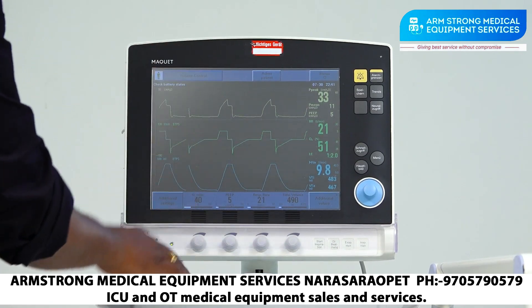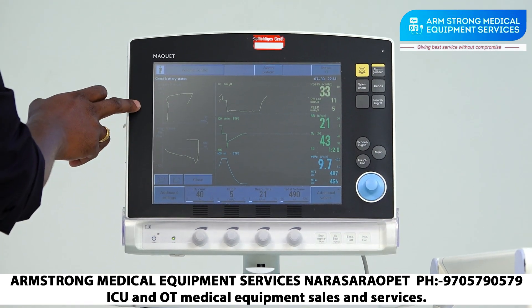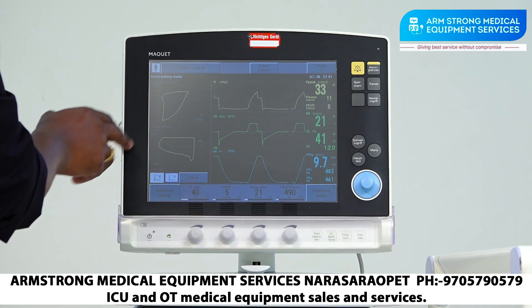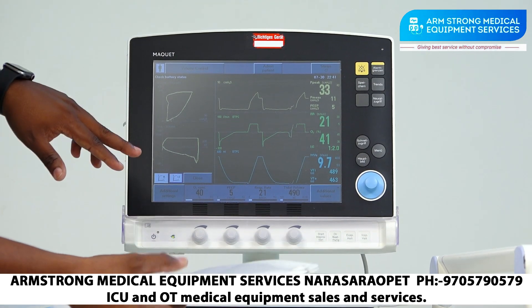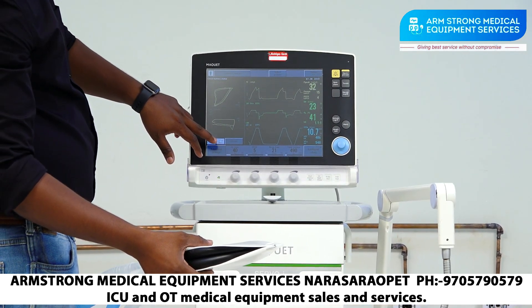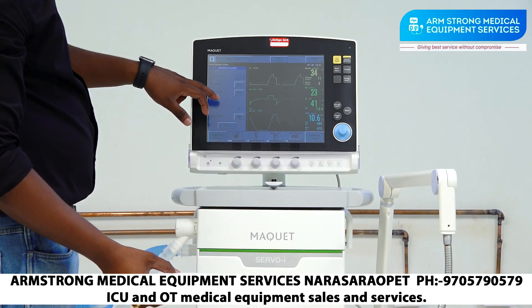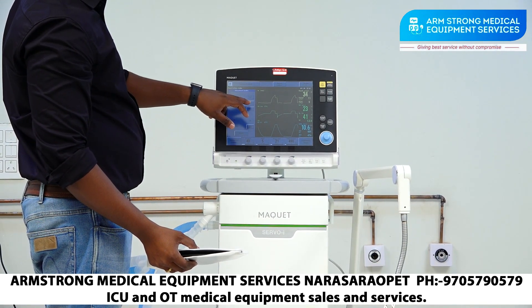In Quick Access we also have Loops — volume, pressure, and flow-volume loops. You can view two reference loops at the same time. As the cycle changes, the loop changes and is shown alongside the reference loop, allowing clinical staff to observe changes in the patient's parametric data. Waveform scales are also available here with an auto-scale option, and you can manually change the scale if needed.